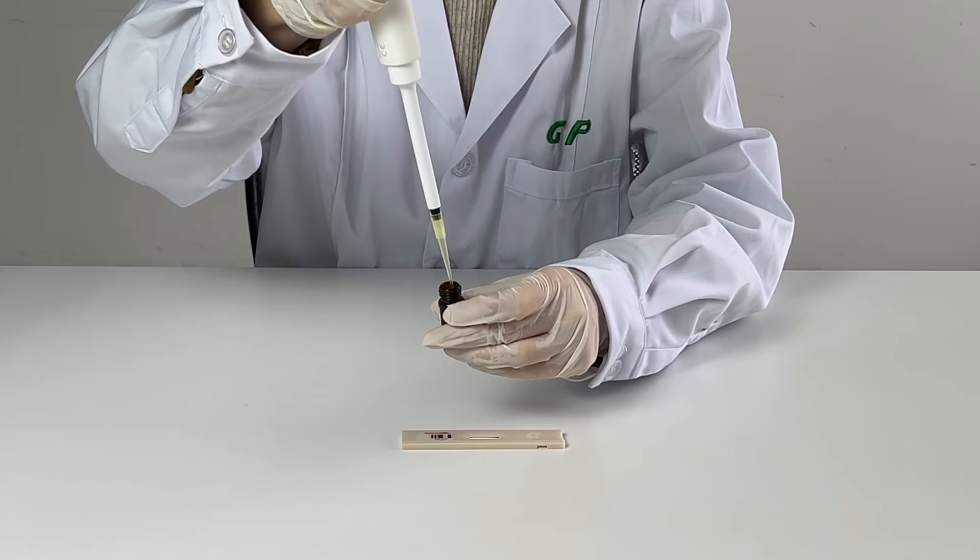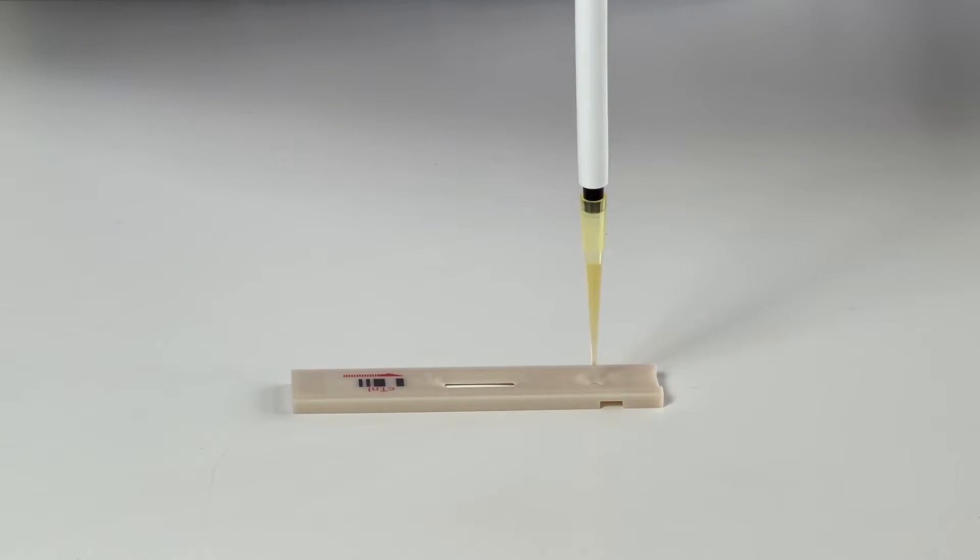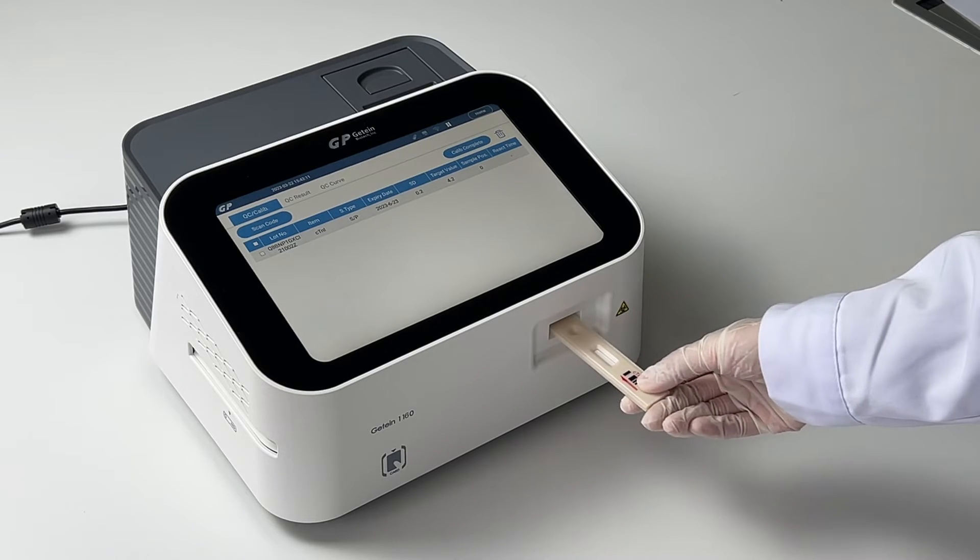Use a sample transfer pipette to deliver 100 μL of mixture to the sample port on the test card. Insert the test card.